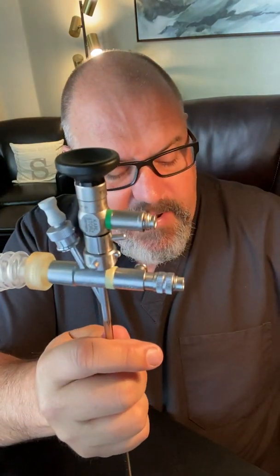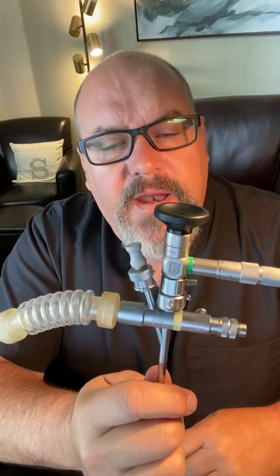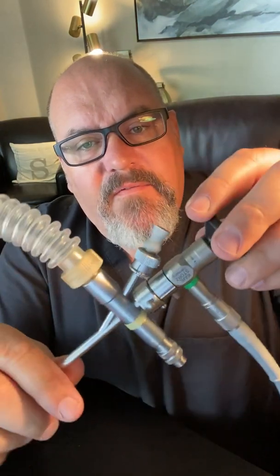And then you're going to provide light to this. Now the rigid bronchoscopy tube is ready to be used. You'll put the camera on, white balance it, and get ready for the patient.